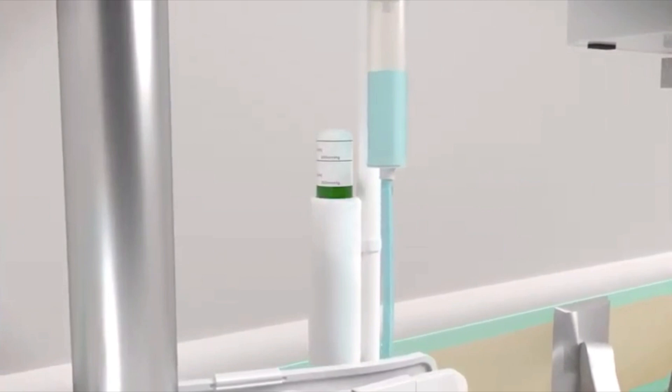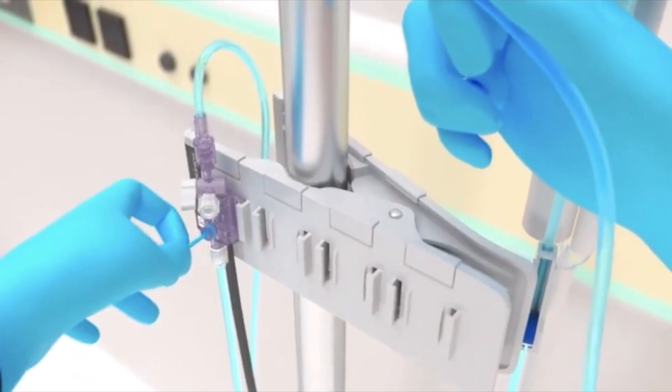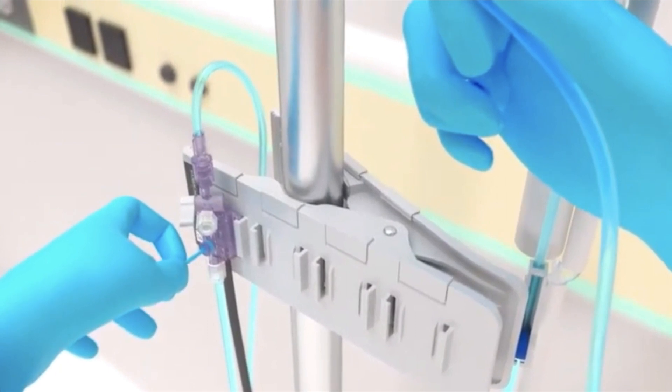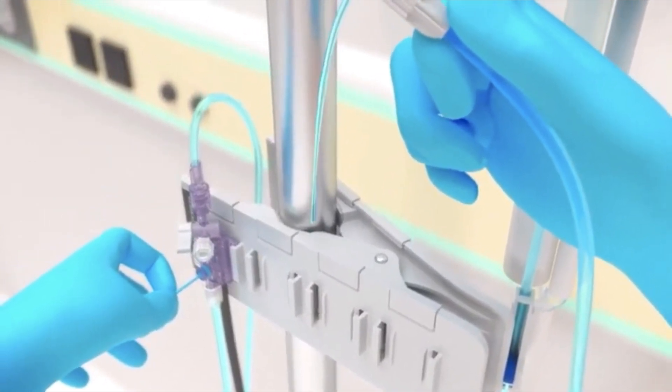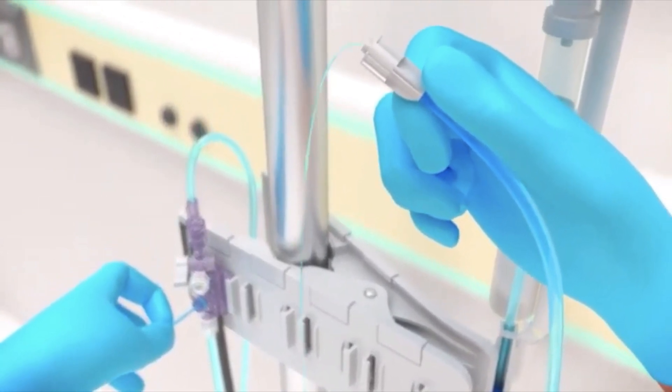There is a green mark you can see in the pressure device bag if you are using the pressure device bag. Number 6: Open the roller clamp and pull the pigtail for each transducer, assuring that all the air is removed and the system is completely primed.